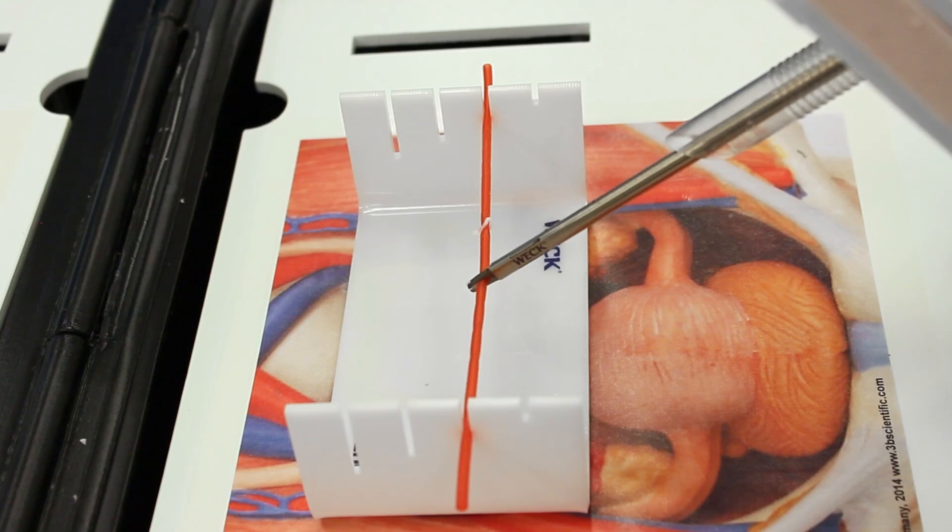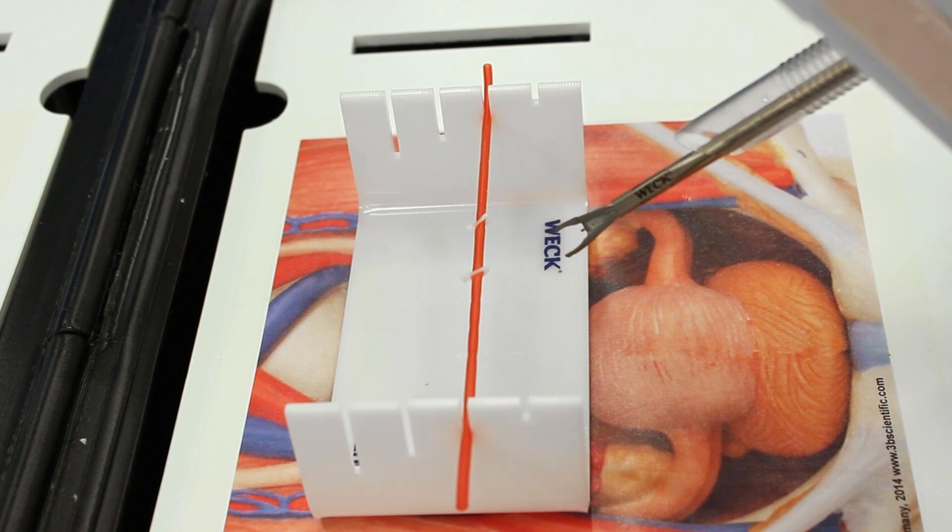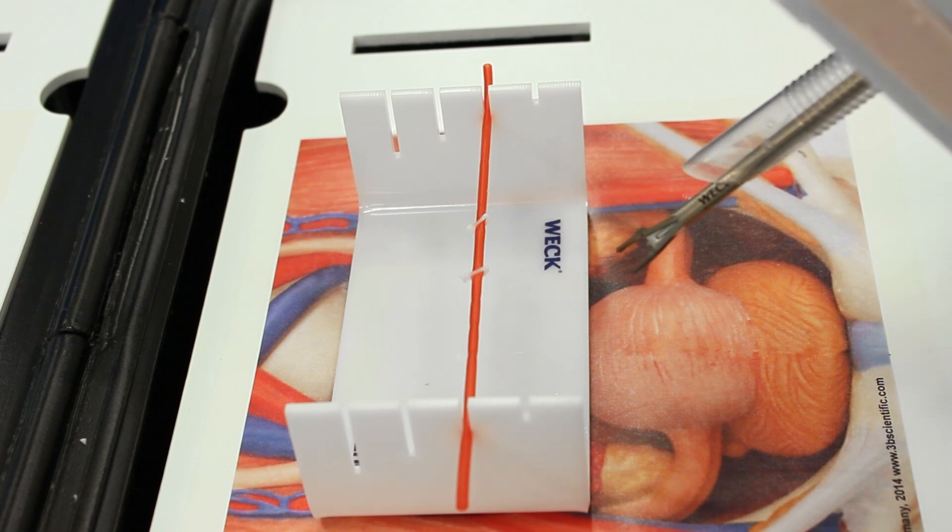Each time a clip is reloaded, ensure the applier jaws are clear from vessel and tissue structure. Clips can be reloaded intracorporally.